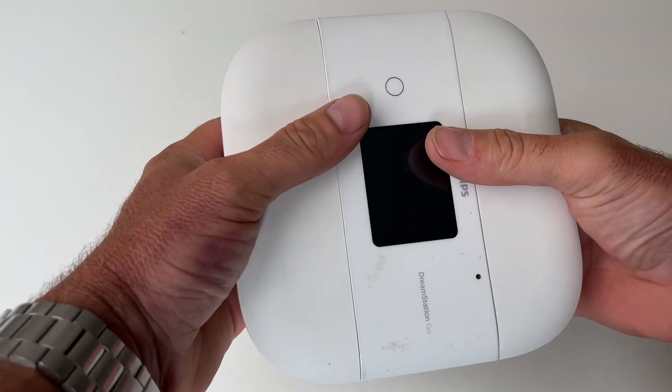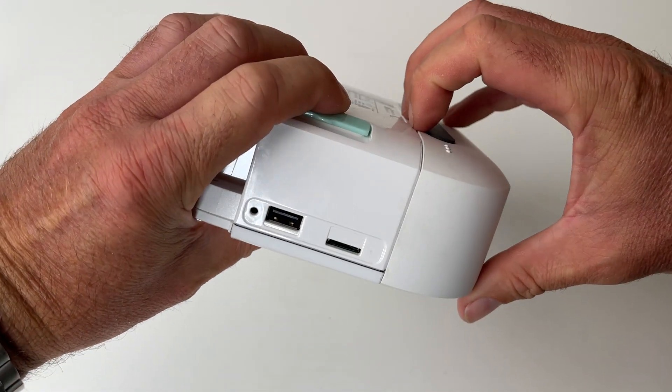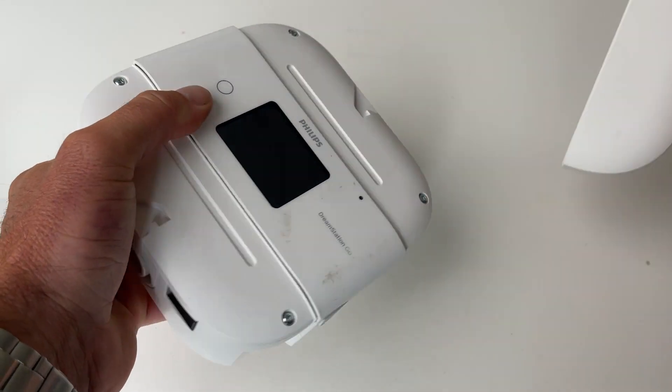To start with we need to take off the two side plates. Really simple — you just grip it and rip it. You could have your Weet-Bix about you. Sometimes it helps if you can just get your fingernails in a bit at the back there and pull it off.